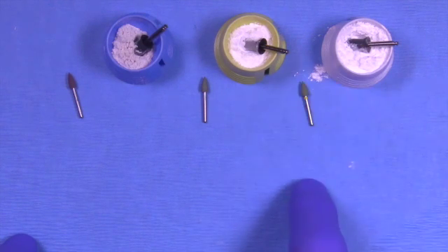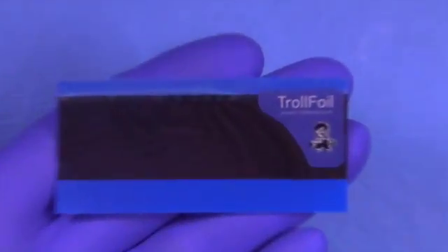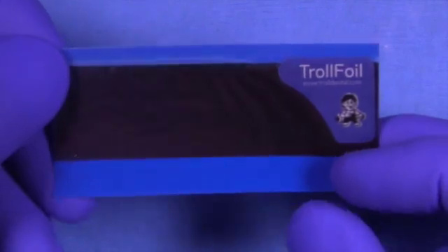I've played around with this for 25 years and found that this particular sequence works best. If we had an area with a groove that needed to be polished, we could get that groove with the brownie and then follow it up with the system the way I've described.